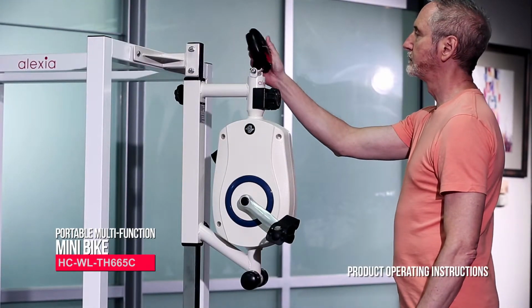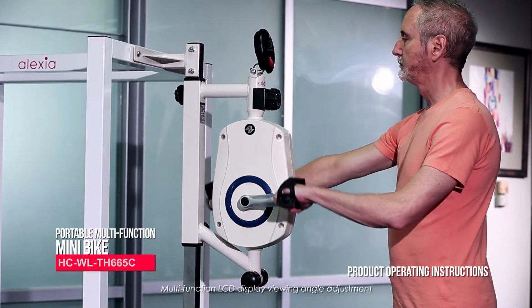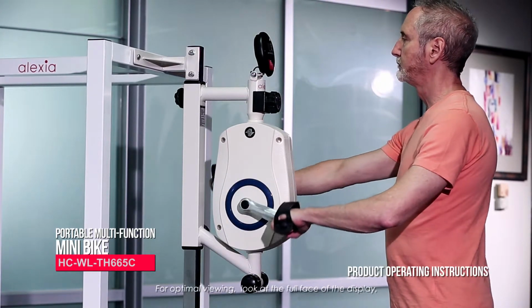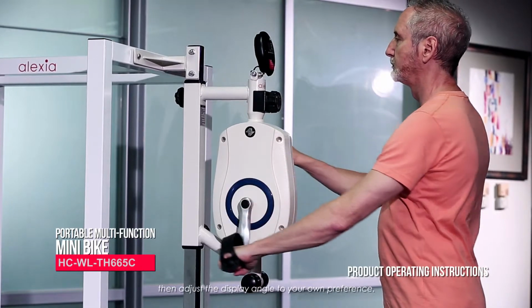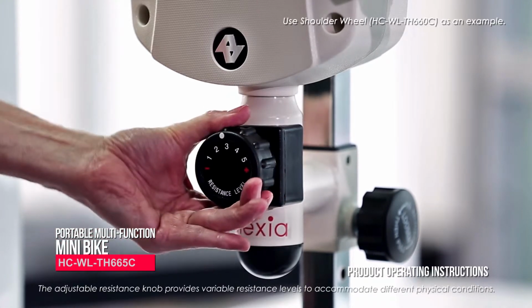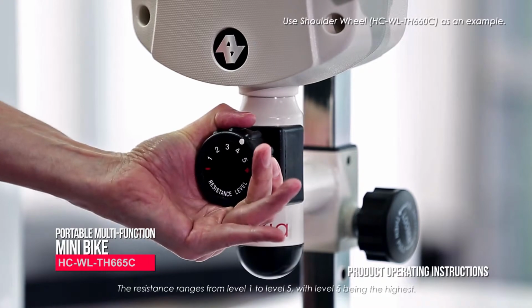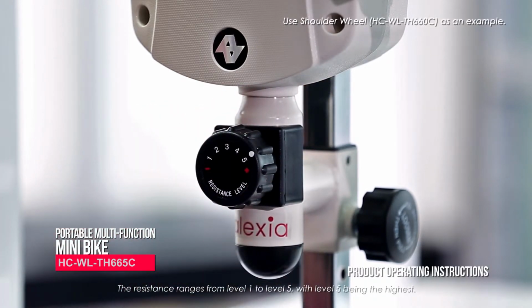Product operating instructions. Multifunction LCD display viewing angle adjustment. For optimal viewing, look at the full face of the display, then adjust the display angle to your own preference. The adjustable resistance knob provides variable resistance levels to accommodate different physical conditions. The resistance ranges from level 1 to level 5, with level 5 being the highest.